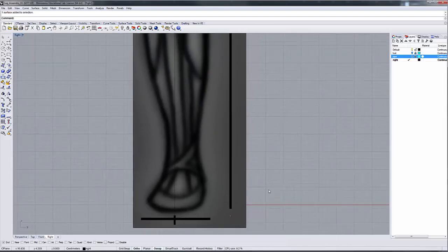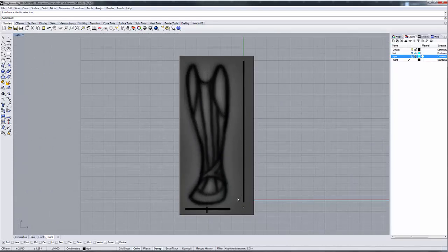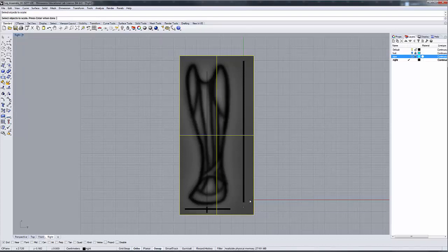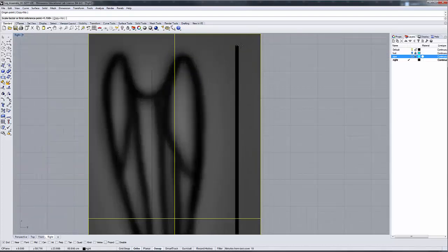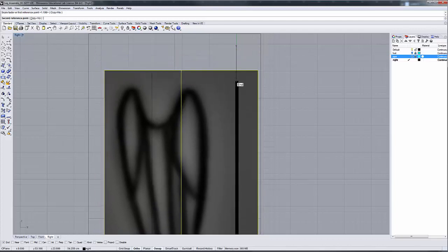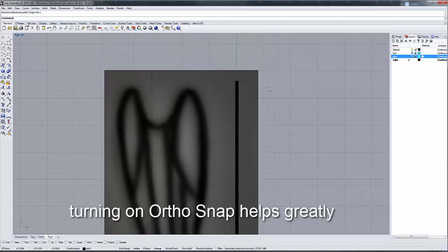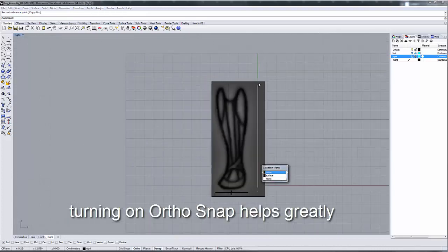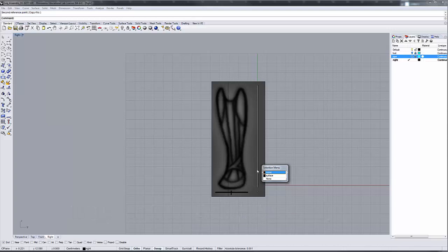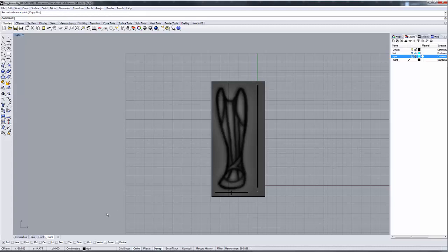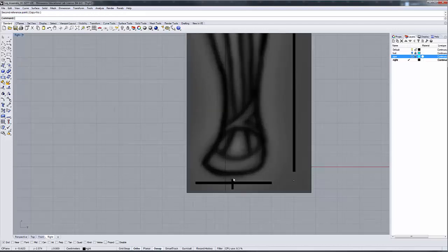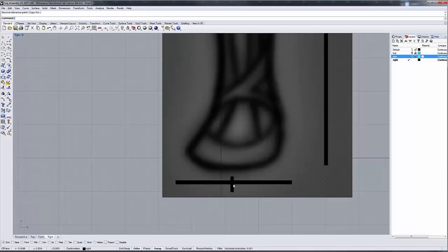Now I have to scale this to that line. I'm going to get my scale tool. I want to scale this element — I'll start from the end there and go up to the top, then scale that down until it meets the end of the other line. What that does is align this image to the scale reference so that now both of those images are at the proper scale. Now that I've done the scale, I have to do the position. This is where this tick mark comes in handy.